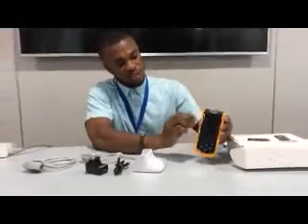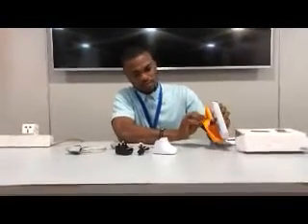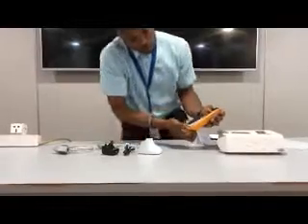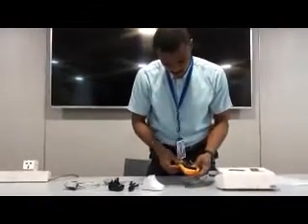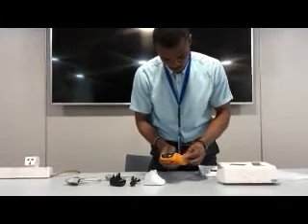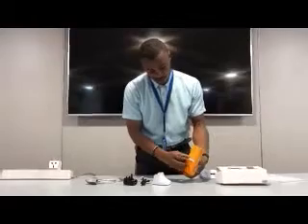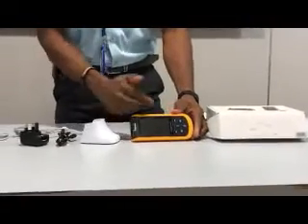I will also describe the equipment. On the unit, there is this yellow rubber — it's like a cover to protect it from stains. I will simply remove it this way, and I will put it back. At the end, you have this like a stand on the device. You easily open it this way. Let me place it on the table.